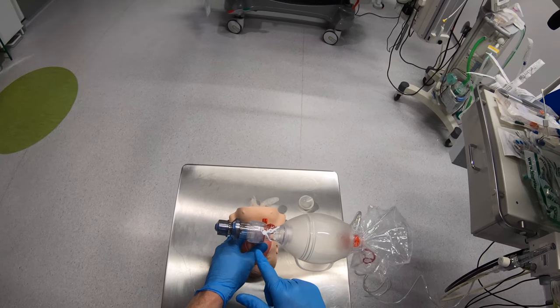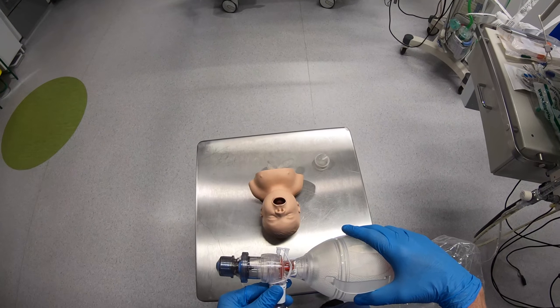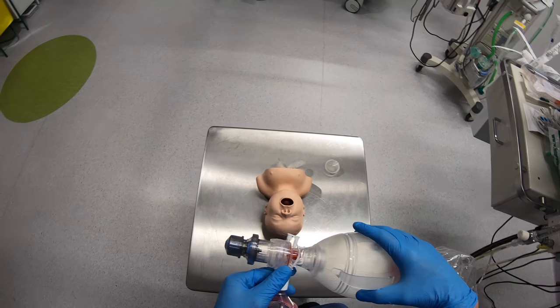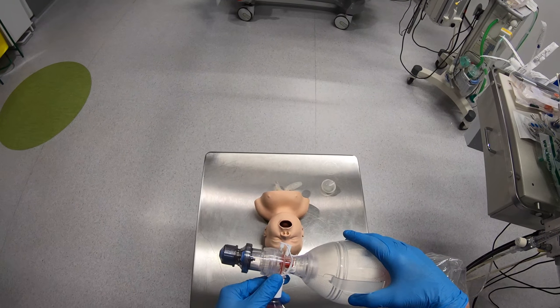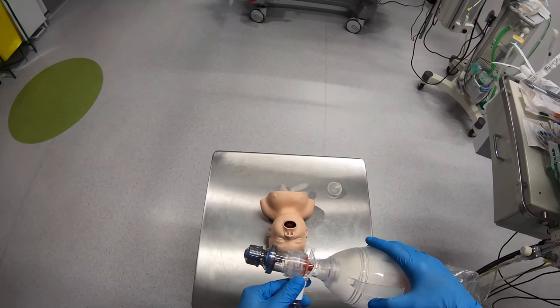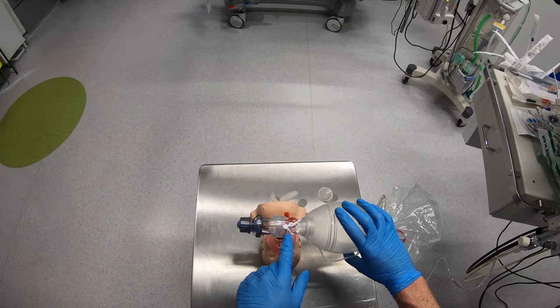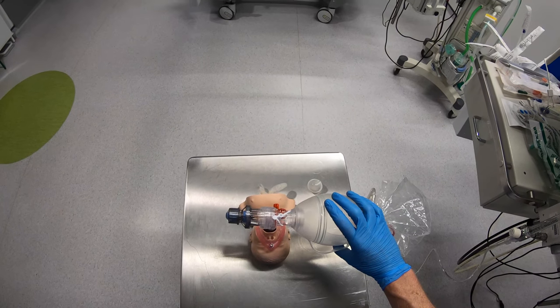There's a bit of debate about how much effort that actually causes. So if you take a small sick baby, they're having to exert quite a big negative pressure to move this valve before they can breathe, and you're potentially making it harder for them to breathe. Some people would say that you should never just put a bag valve mask on a patient because you can suffocate them. Others would say the effort to move this valve is minimal and there'll be no difficulty doing it.